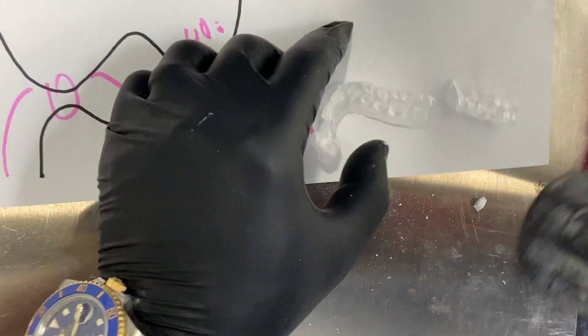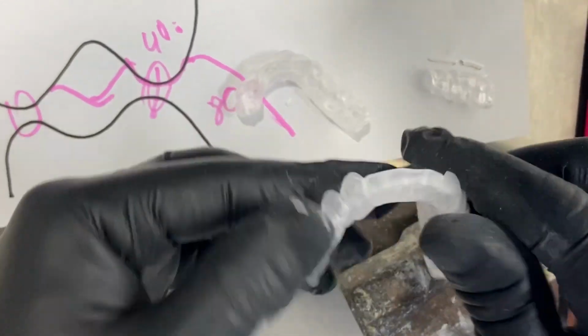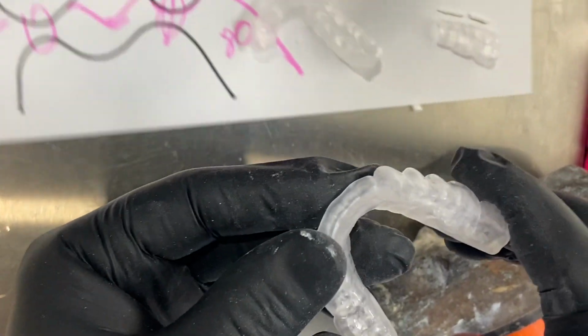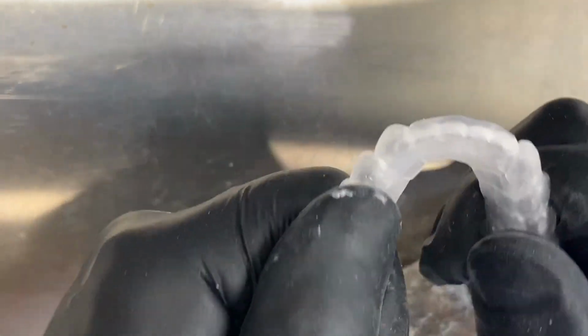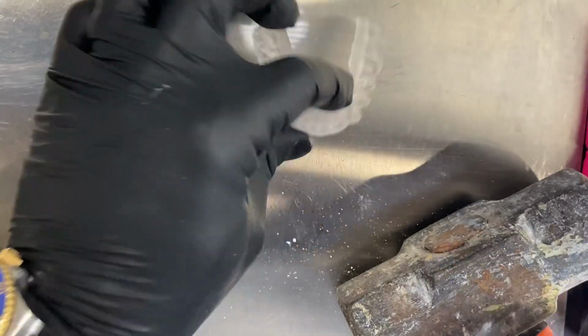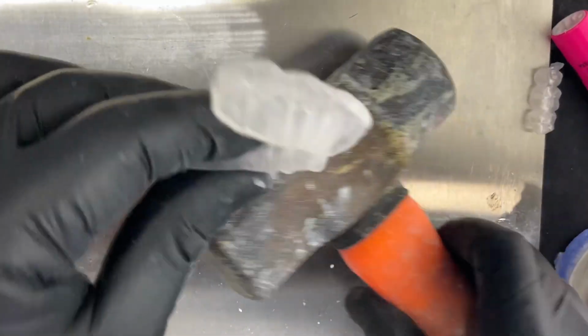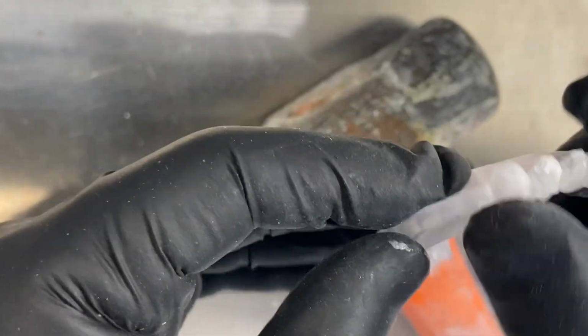Now, these orthotics that are in acrylic, yes, they can chip in pieces. We have this nylon option that doesn't bond to anything, but we have the alternative that this material flexes. It doesn't mean that it's not going to break, but we can abuse it a little more. You can see I'm squeezing it, and the material is not breaking. Technically, it can unadapt, but no breakage. You have to hit it really hard to break it, but the pieces are still trying to stay together.